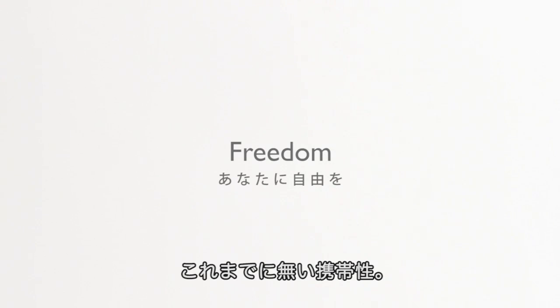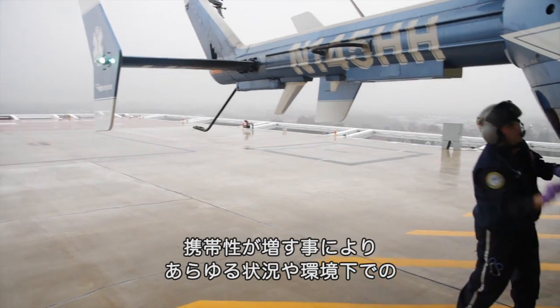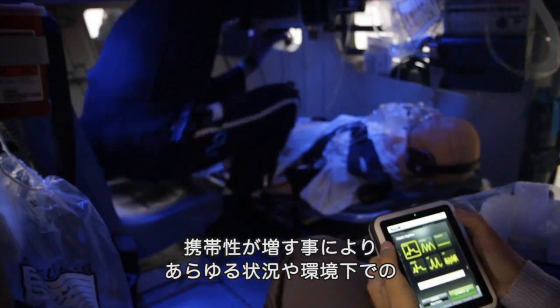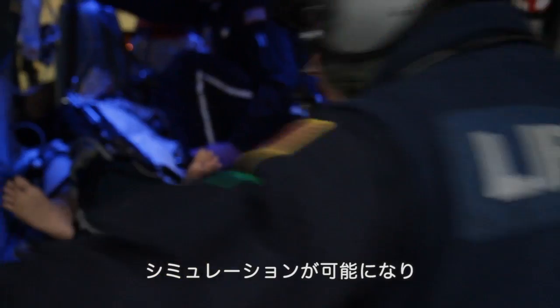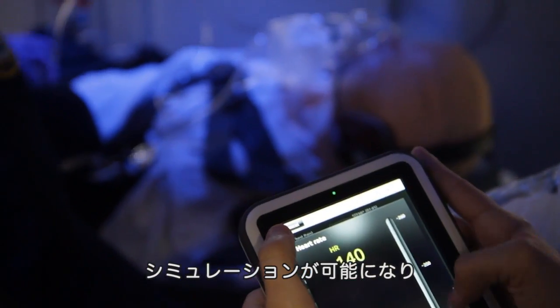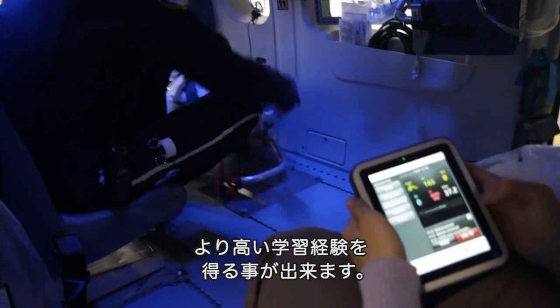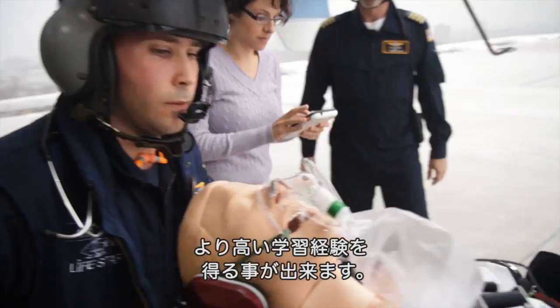Experience a new level of simulation mobility. Picture what total mobility can do for your simulation training. With SimPad, you'll be able to train for any situation or environment, which will enhance the learning experience like never before.